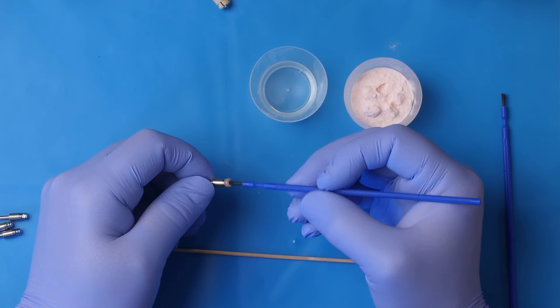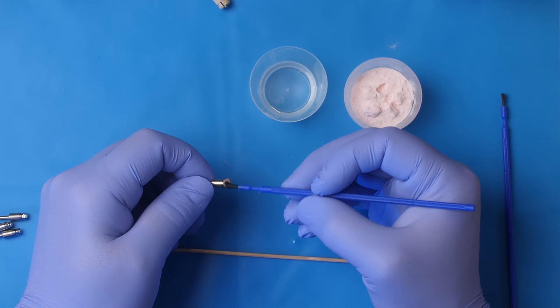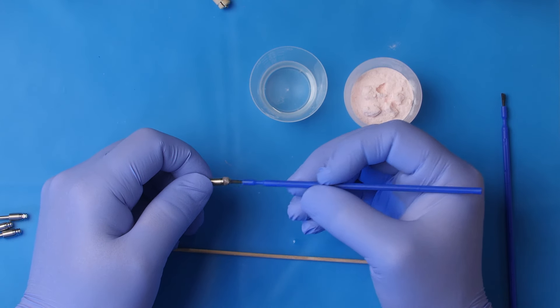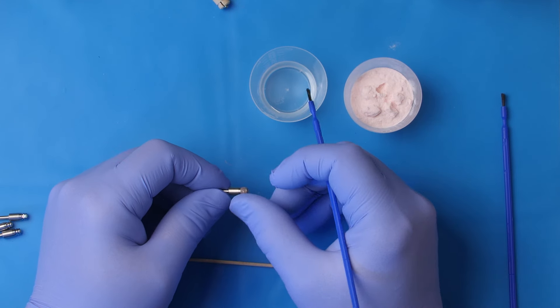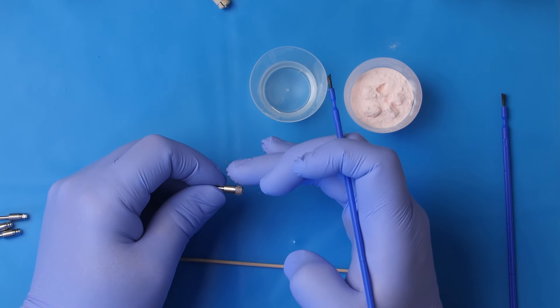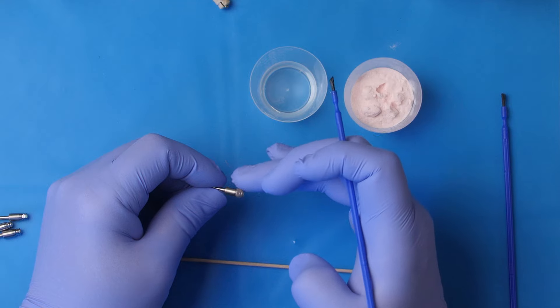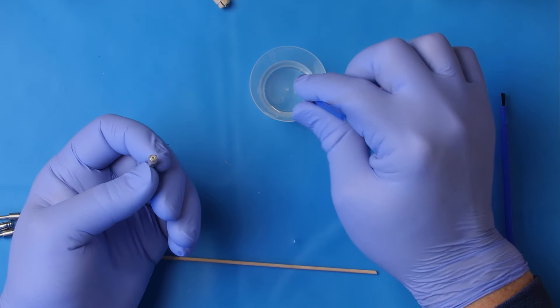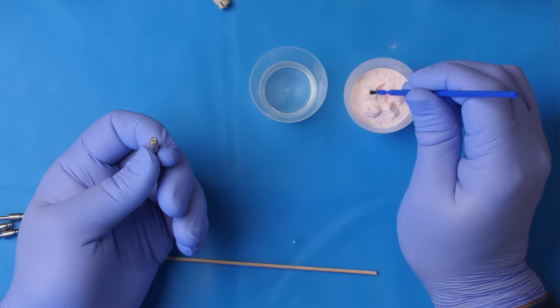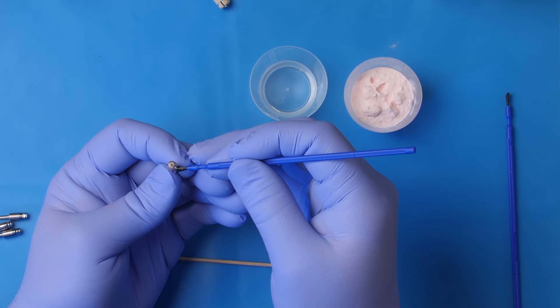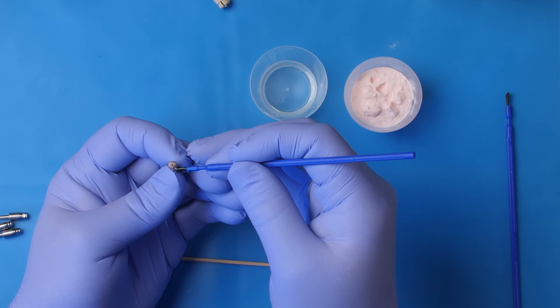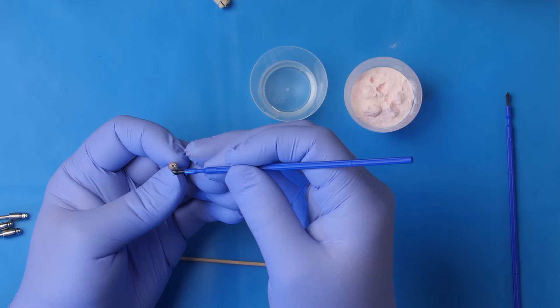I'm just going to shape that because I don't want to add a whole lot of girth to the part. So this is one technique for pre-coating. Then I'm going to come back at it from the top and capture that separable fastener.